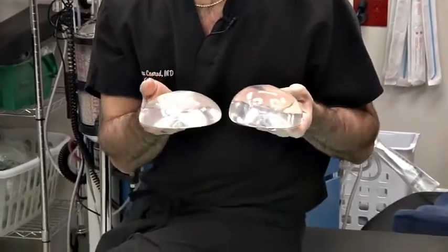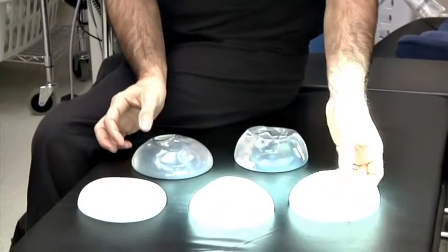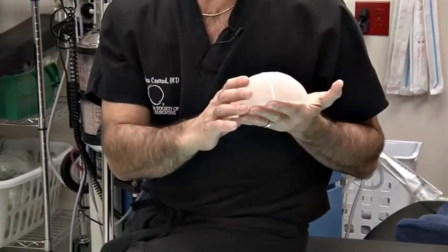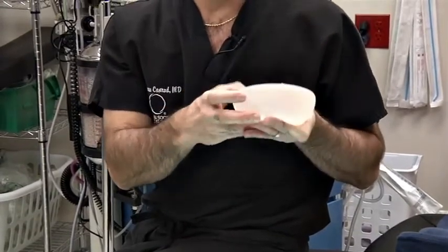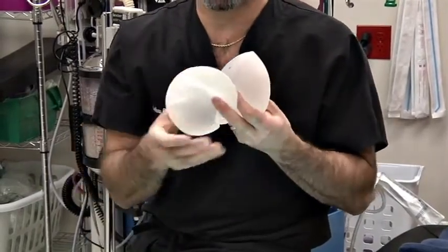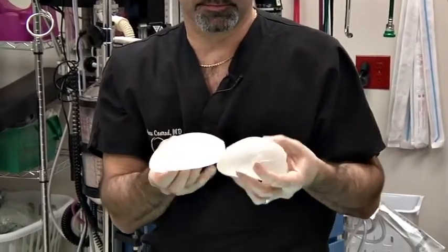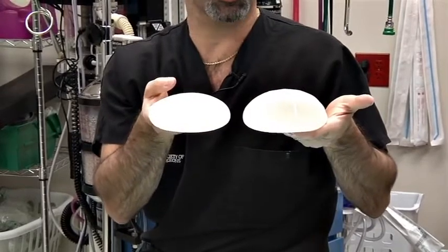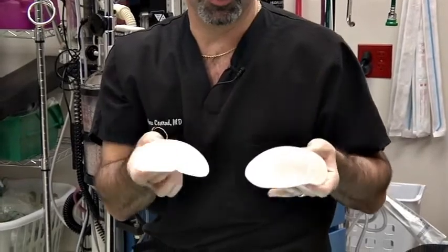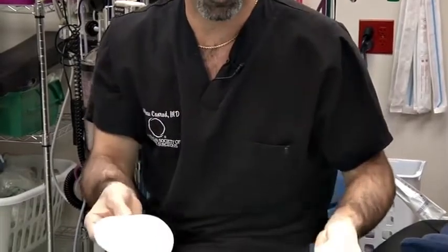And this would be tailored to the patient's width of her breast and the shape of her chest. The shaped implants come in all different sizes and shapes as well. We have here an oval-based implant. As you can see, the back of it is fairly oval. In contrast, this implant has a much different footprint. It's called a classic profile, and they each have different amounts of projection depending on how much filler material is in it and the design of the implant. These would be tailored to the different shape of the woman's breast or her chest shape or something like that.